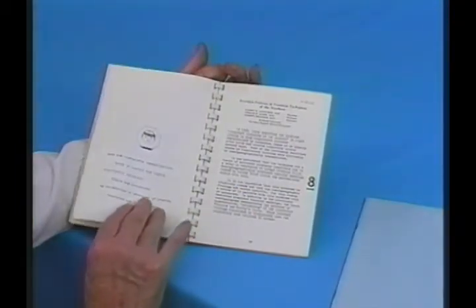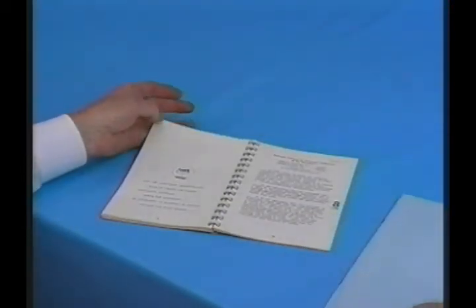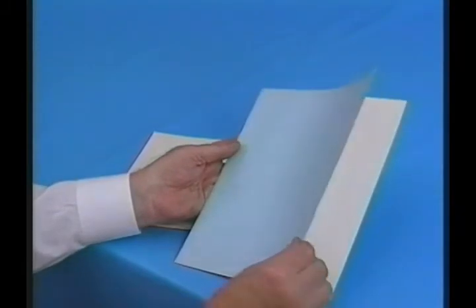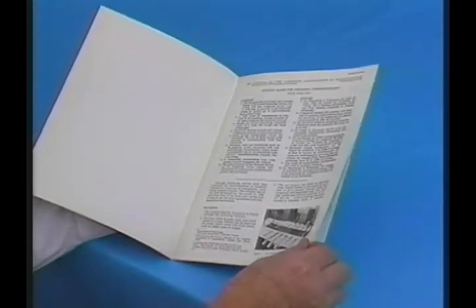The instrument was presented for the first time in March 1968 at the meeting of the Canadian Association of Radiologists and published in the journal two years later.